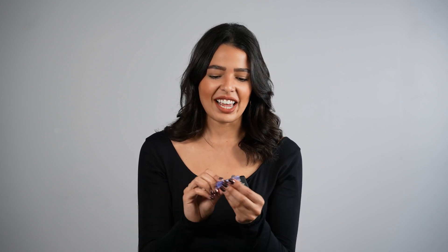This is one of the dentures — a really well-printed denture. It's kind of crazy to think that this is 3D printed, that this was just liquid an hour and a half ago, and now it's full-on denture teeth.